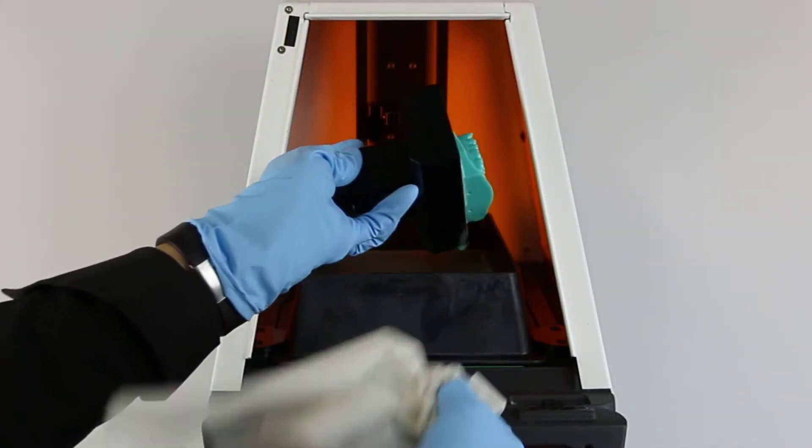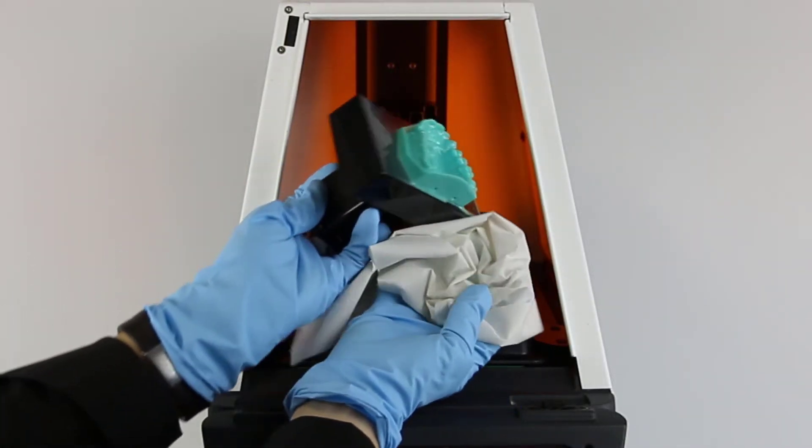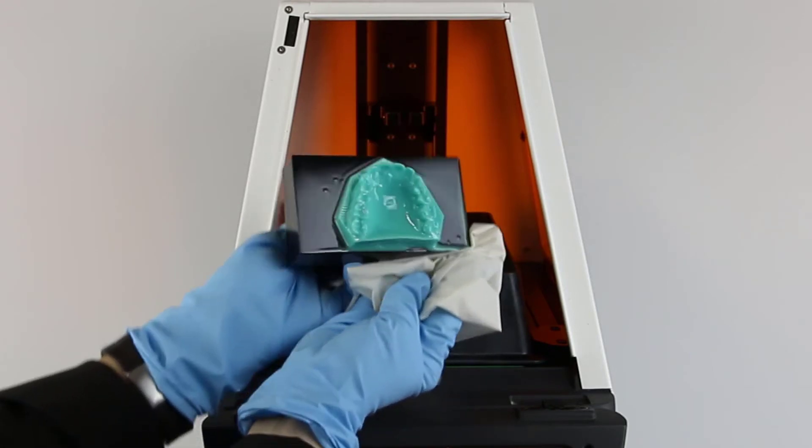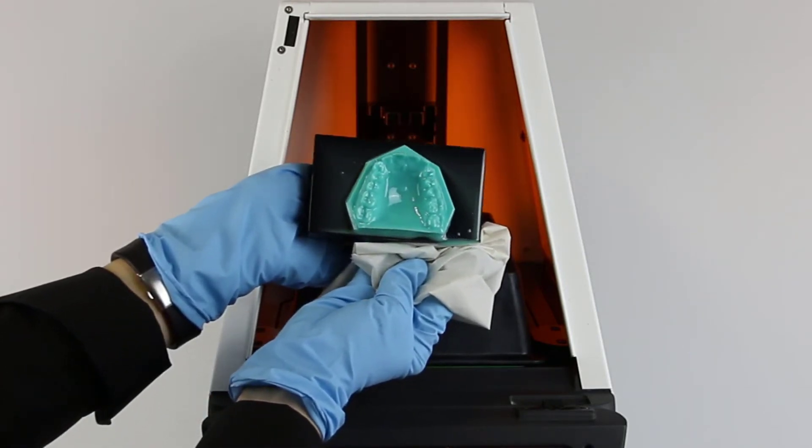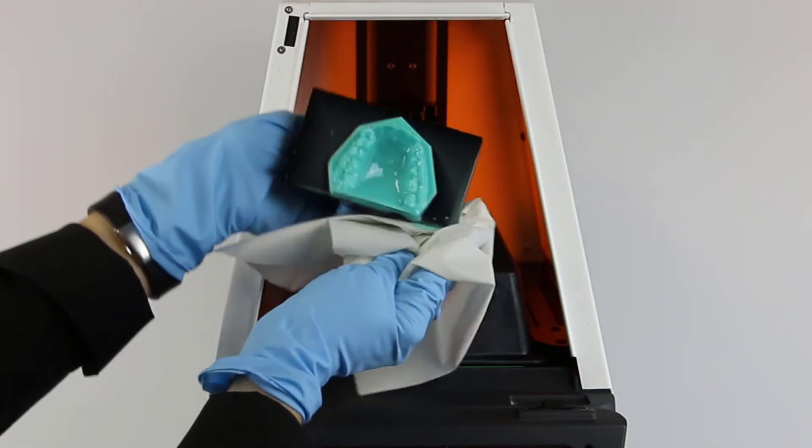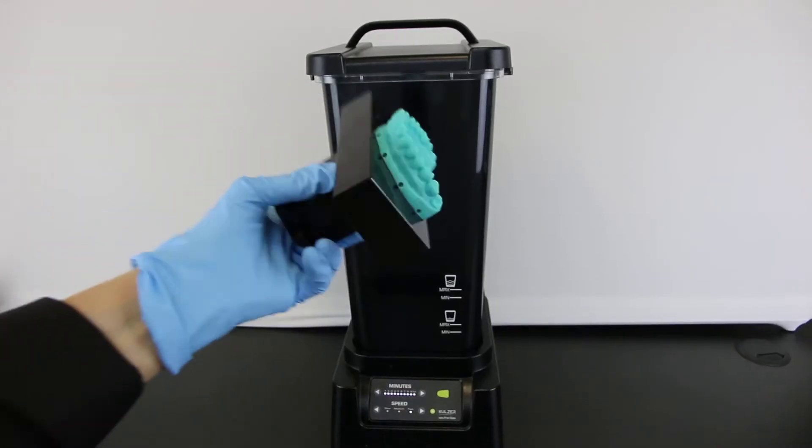After printing is finished, remove the print platform with the print object. To ensure ideal cleaning, rinse the object with some isopropanol and blow off any excess with compressed air.